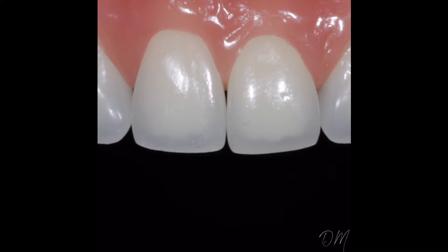The first thing I notice when I look at the teeth on the typodont is the angulation of eight and nine seems off. I put a line down the center axis of each tooth, and as you can see there's a distal cant to number nine. It almost looks like it's kicked out a little bit compared to number eight. I also noticed this little wonky area.